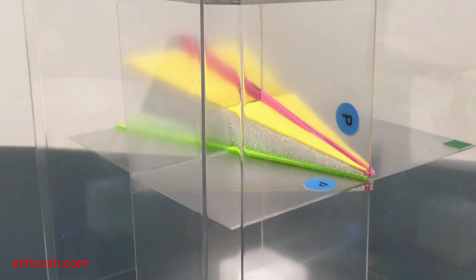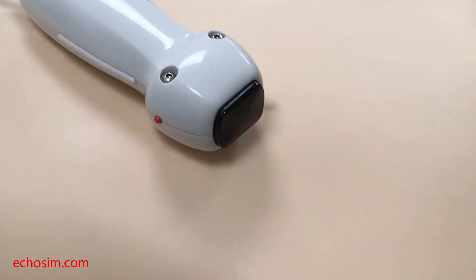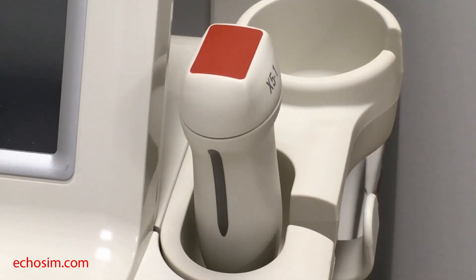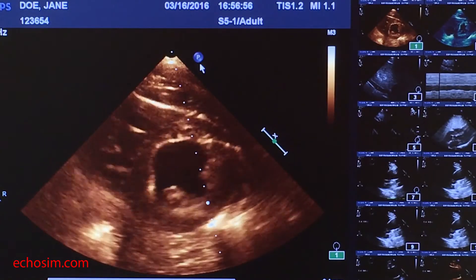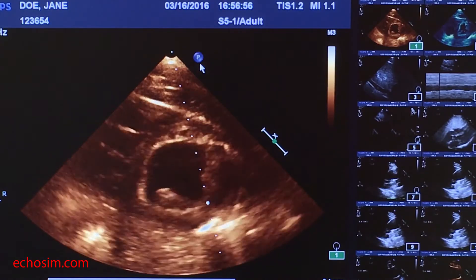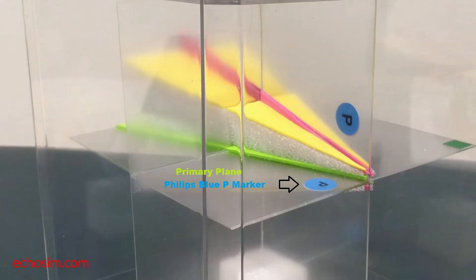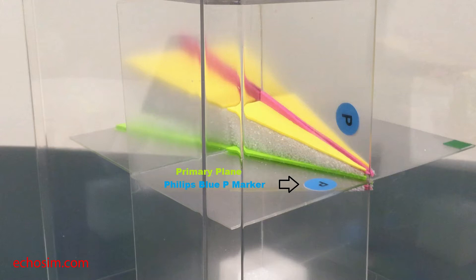All TTE probes have either a colored marker or a tactile marker. These markers uniquely identify one specific side of the reference plane. The ultrasound machine will also have a marker on the 2D ultrasound display, and this marker on the display corresponds to the marker on the TTE probe. This blue P marker is used by Philips to denote the side of the displayed plane which corresponds to the marker side of the TTE probe.